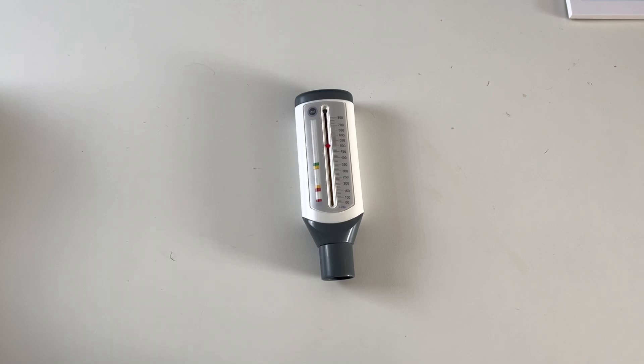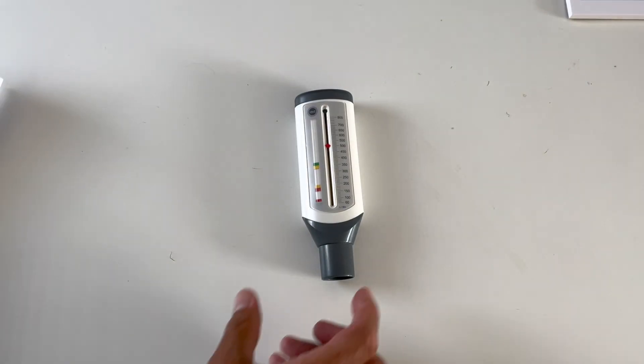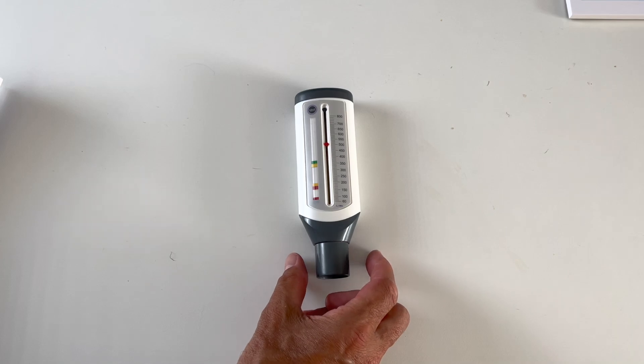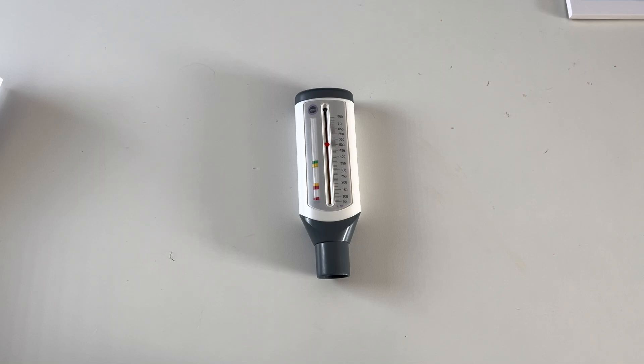There's a variety of pressurised inhalers that you can get from the NHS. And the idea is, according to these instructions, is that you do a daily test before you take the medication. I will put in the notes to this YouTube the link which shows the range of normal values for what this is called a peak flow test.